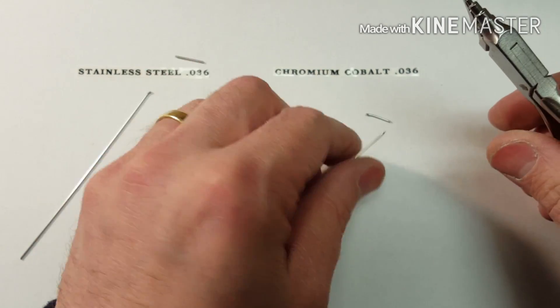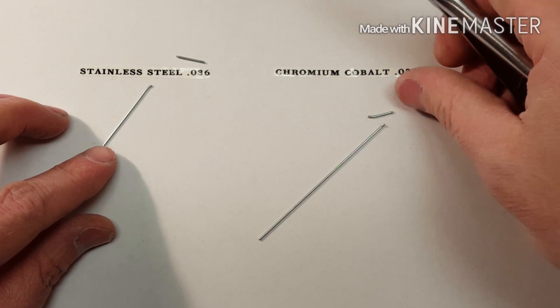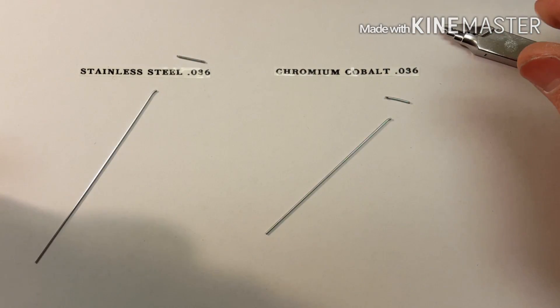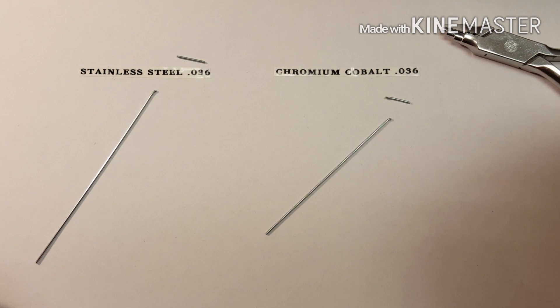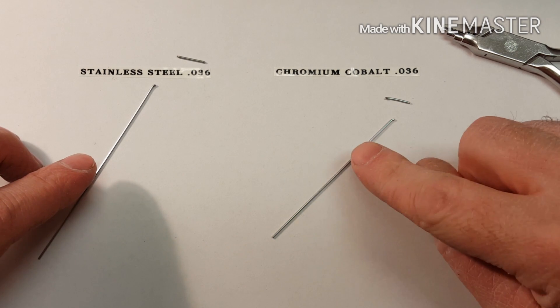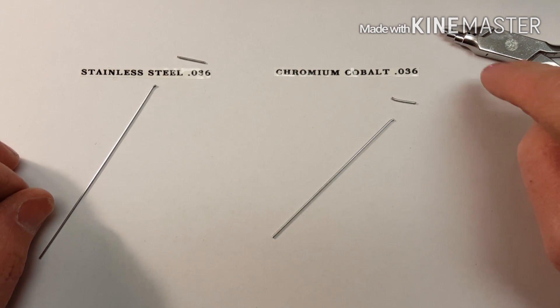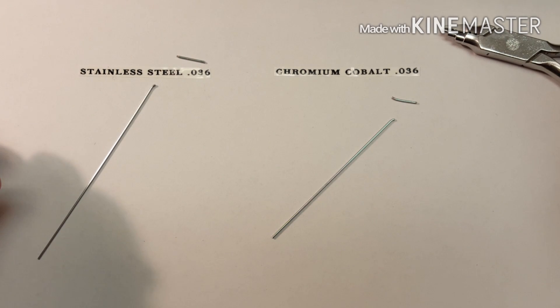So that's your huge benefit in preventing retainer wires from popping — you can bend it many more times. Other than being a huge benefit, using chromium cobalt wire over stainless steel also comes down to cost. This wire compared to this wire is between 4 to 5 times the price, so there's no doubt it's definitely more expensive. But over the long run, it's definitely worth it.